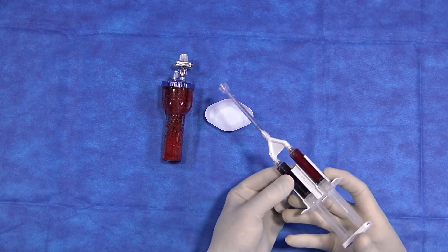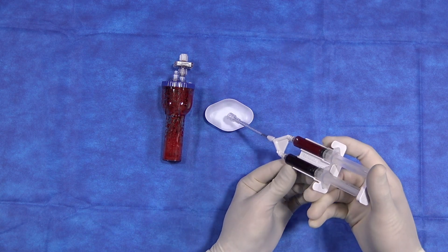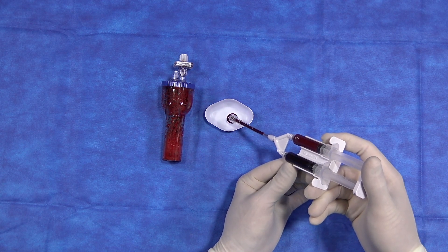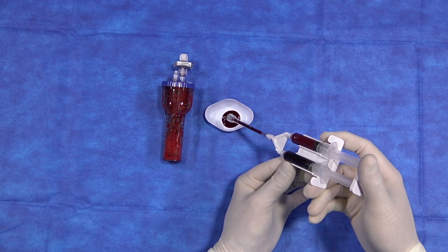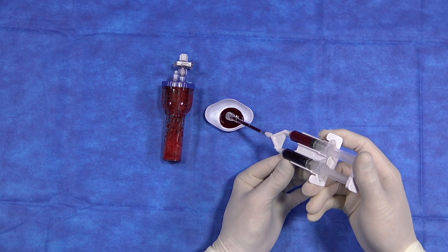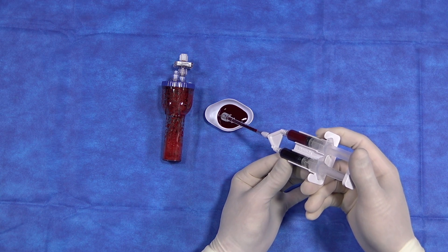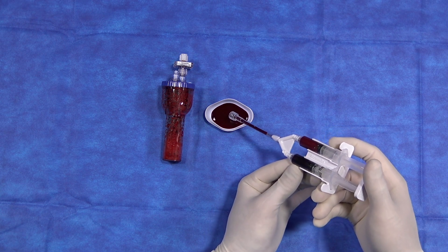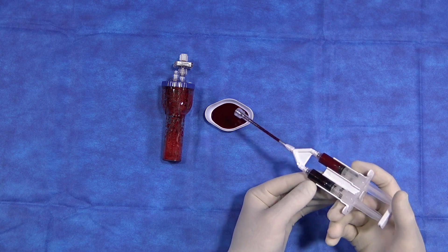We have the ratio applicator loaded and we will now produce a clot. You should see a stable clot formation within 8 to 15 seconds. Let's go.